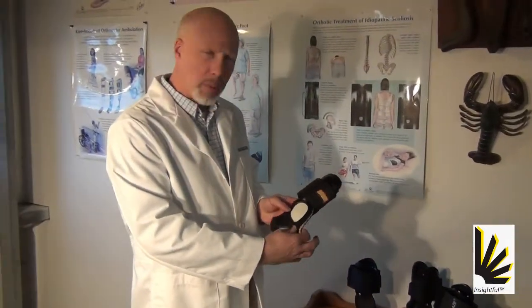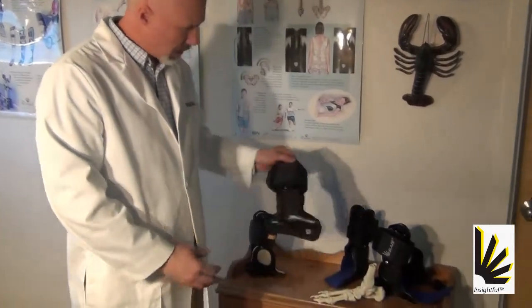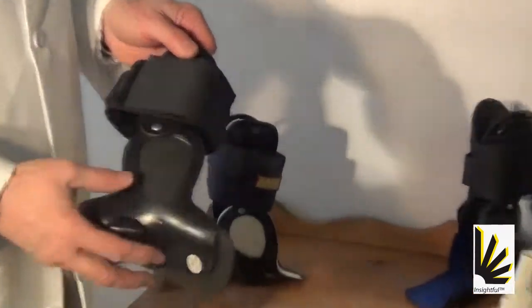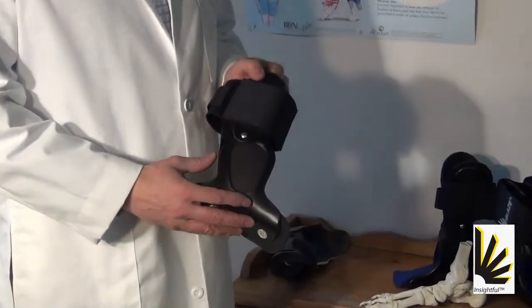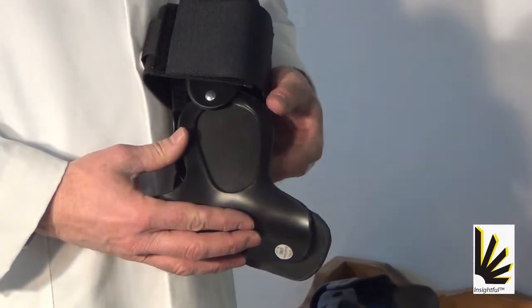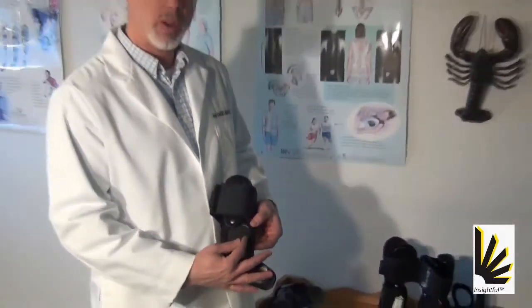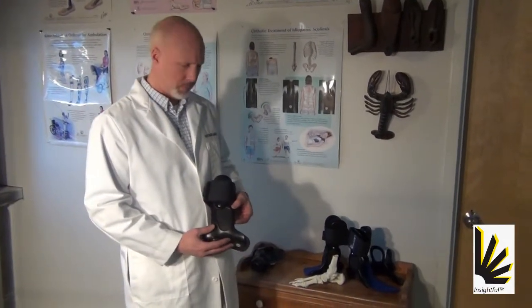But then we had this problem with the navicular. So, in an attempt to rectify that, we ended up with a longer window. The problem with this design is twofold. One is we ended up with not so much support, and the other is that we ended up with the anterior frame of that window cutting into the throat of the shoe.